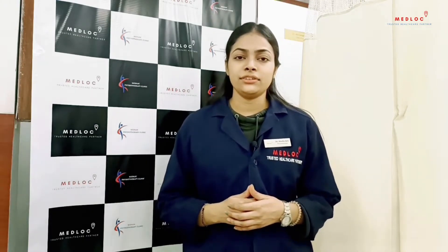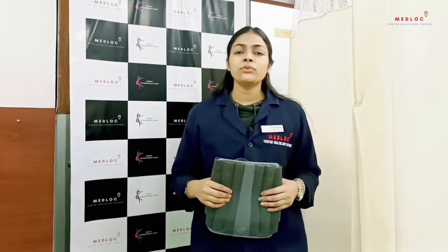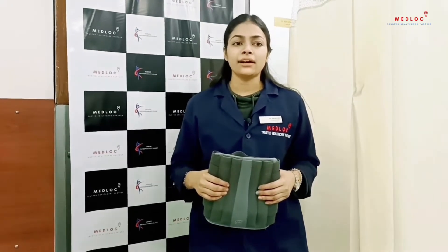It is beneficial for aiding your body with the best support possible. You can use this belt while driving, working, or sitting and in many situations. It provides support to your back and helps in posture correction, eases your back pain, and provides a firm support to your back.